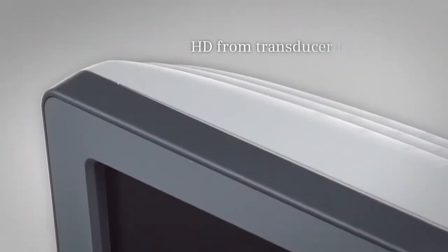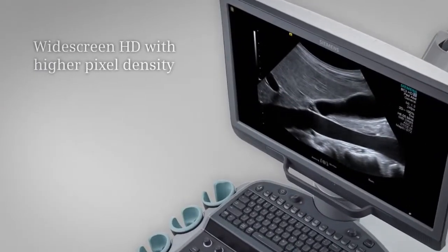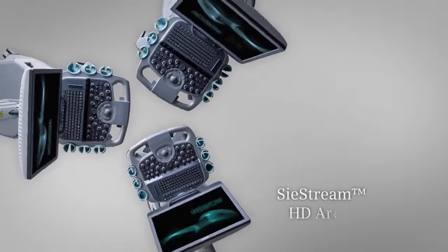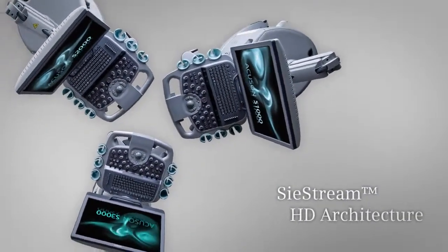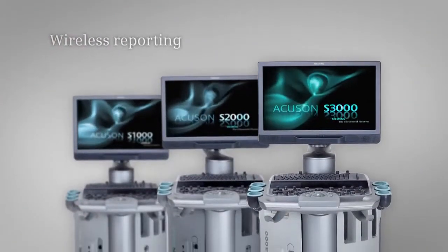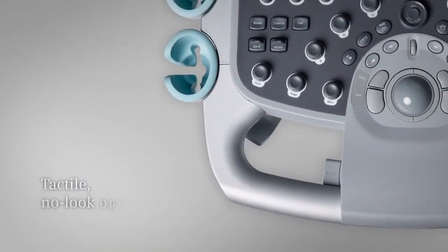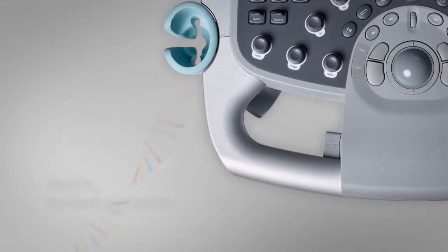See detail in stunning high definition. Get accelerated workflow. Experience value and sustainability.